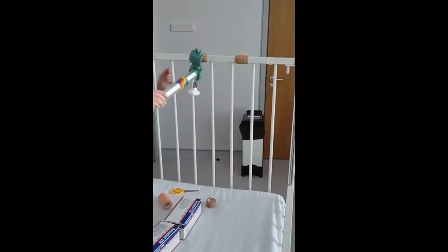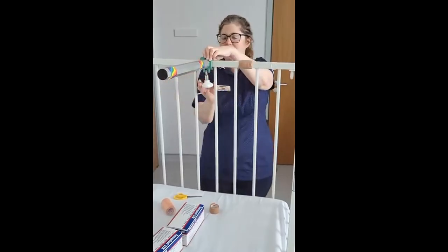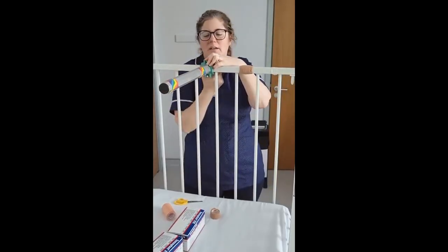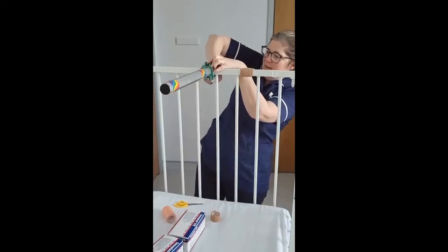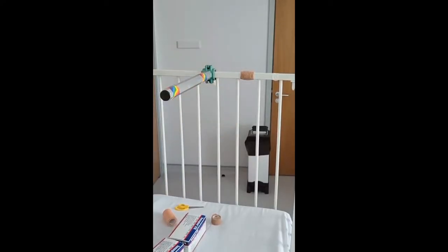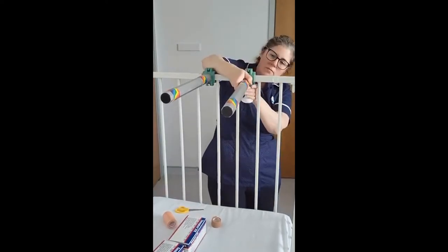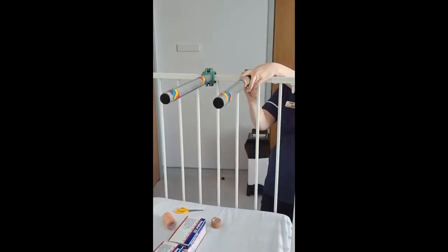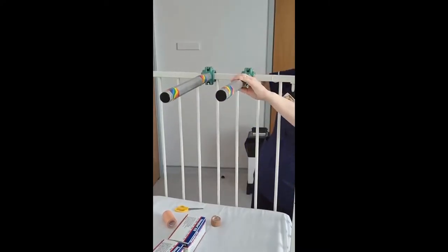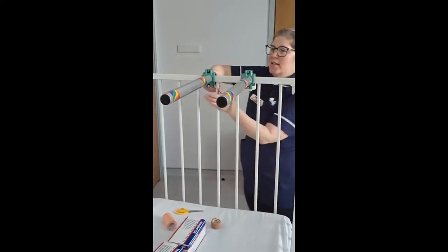Cot setup. Place the bracket around the end of the cot. Extra tape has been applied at the end because it doesn't quite fit properly. When we get our dedicated gallows cot we won't have this problem. For now, make sure it's good and strongly, tightly done up so that when a child is hanging in it they do not fall. Then the other bracket is on the other side. The poles have been coupled with waterproof tape so that it is identifiable as what we use in gallows traction.